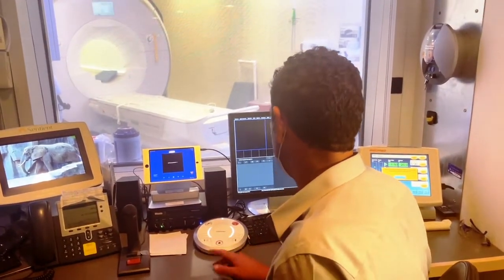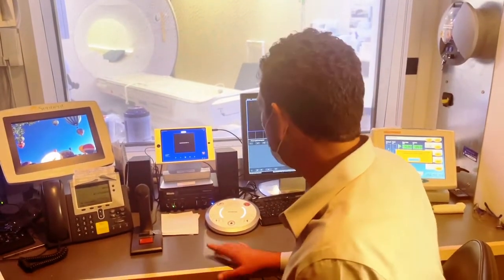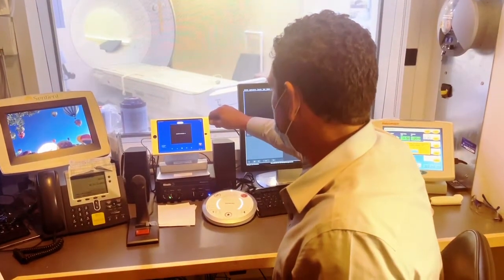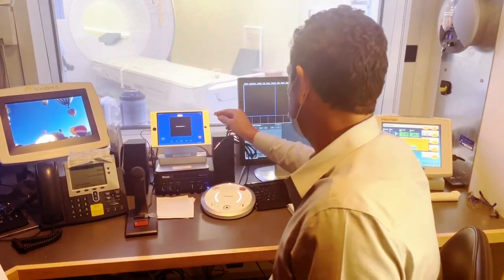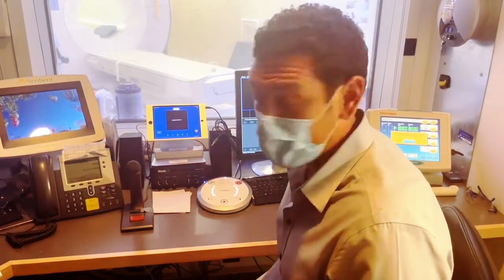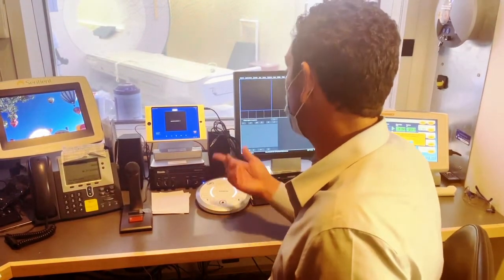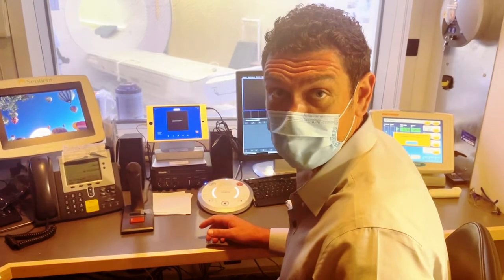If you're doing a scan such as a liver or abdominal scan that requires auto-voice, you can disconnect our audio system, connect the Siemens intercom which plugs into the Siemens headphones, and use auto-voice while still using the iPad provided with the MRI audio system.